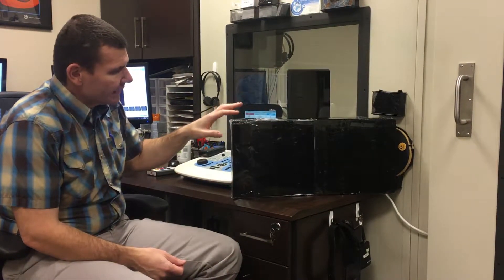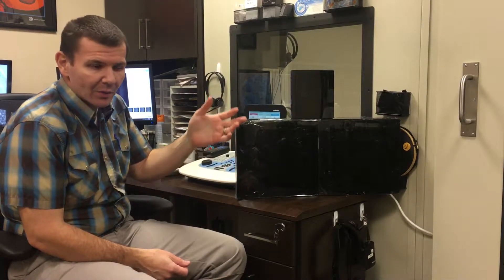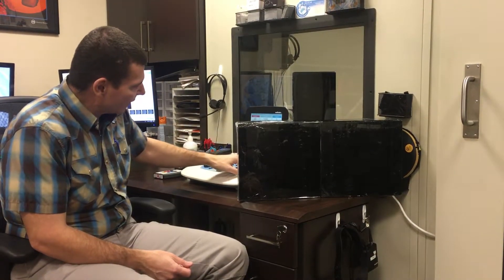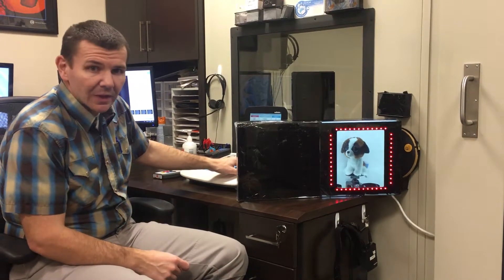With Condition Play Innovations we have two options. You can either use the wireless remote, or if you don't want to worry about changing batteries or you want to use the buttons on your AudioStar Pro, we've integrated it so that you just hook it up through a headphone cable. For example, if I push the right one, the right character will light up.